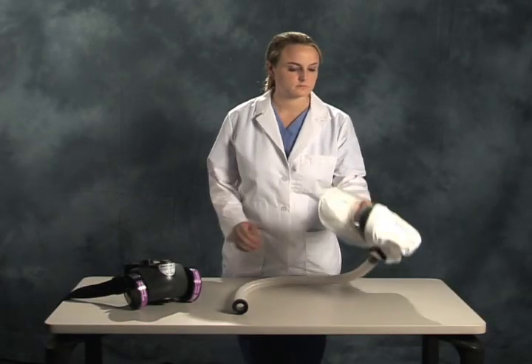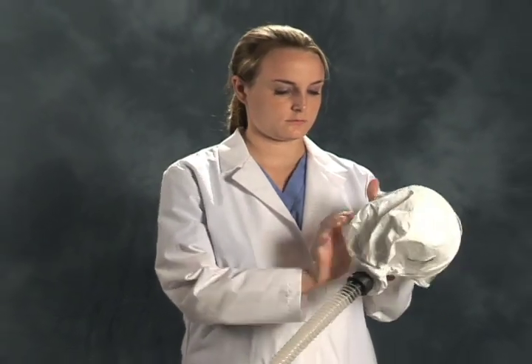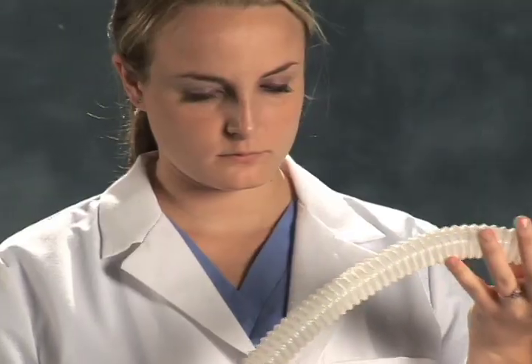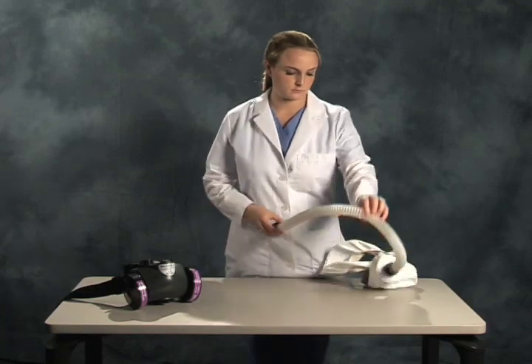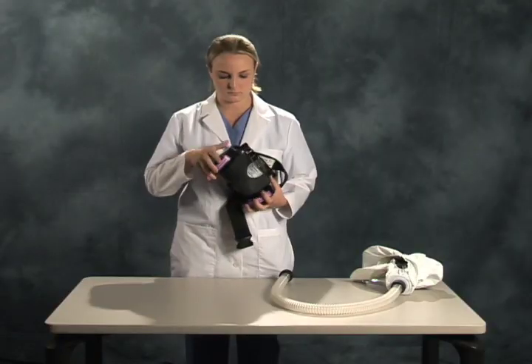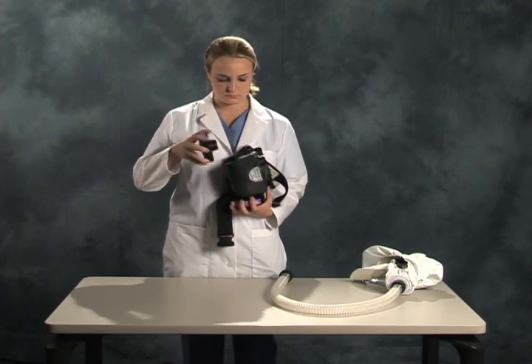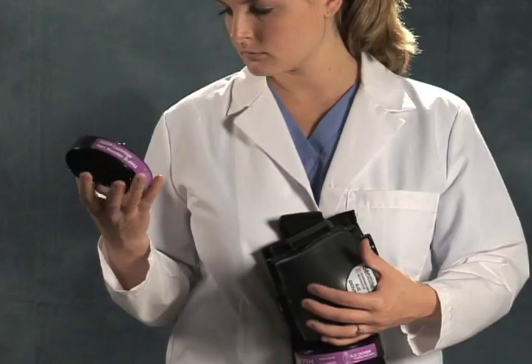In order to verify that your system has not been damaged during storage or when it was issued to you, the following system checks need to be performed. Perform an overall visual inspection of the unit by starting with a thorough inspection of the breathing hose, looking for any nicks or cuts. Next, examine the filter blower unit again, looking for any damage. Lastly, check for the presence of both filter gaskets and examine them to assure there is no damage.